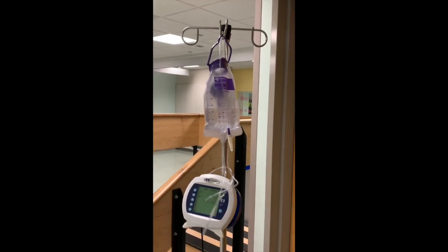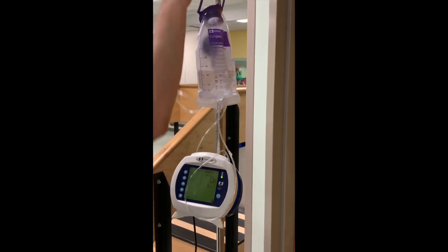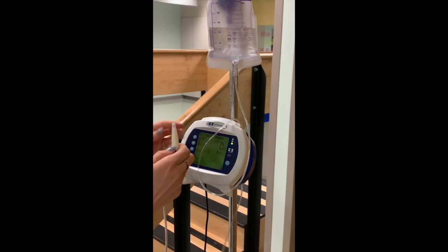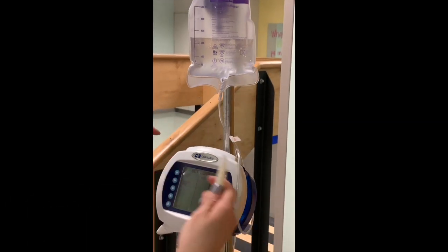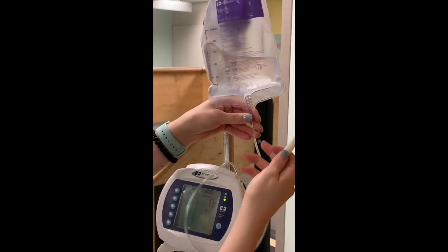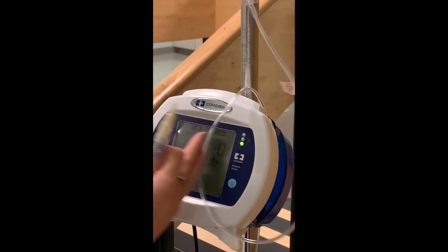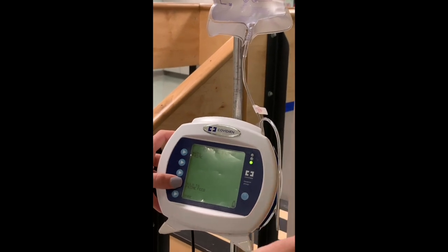All right, great. So now that we've got water in our bag, we're gonna prime it first, because what we don't want is to attach this to our patient with air all in the tubing and give the patient a whole bunch of air. So what we usually do is prime. So I'm gonna take the cap off here and we're gonna prime. And we'll be able to see the water. It's easier whenever it's formula, but you'll be able to see the water travel through, and we'll stop it when we get to the tip. So I'm gonna touch the prime button and click hold to prime feed.